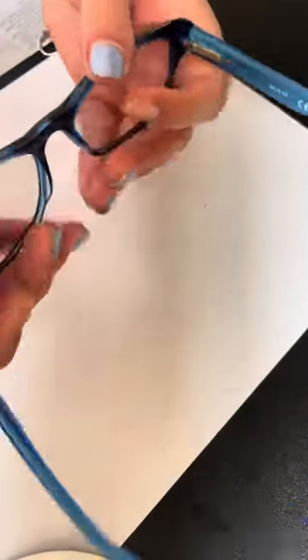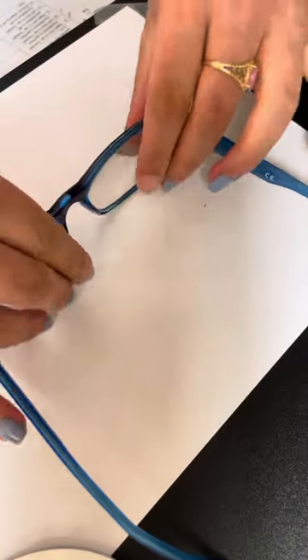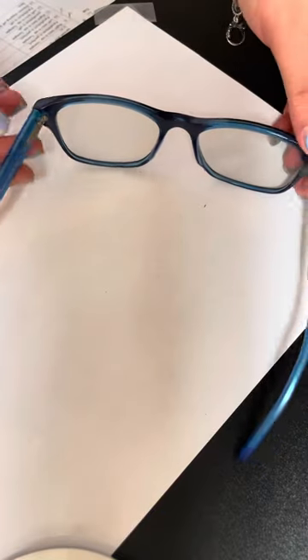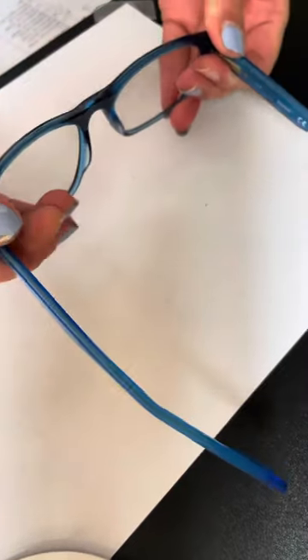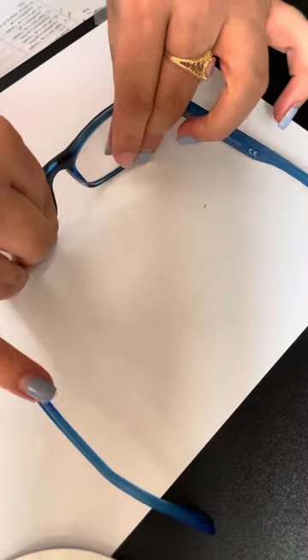Because our lens was down, so we bring our end piece up, making always sure that it's to a 90 degree. A little bit more up. Then we put it back on our patient's face with both of our hands.